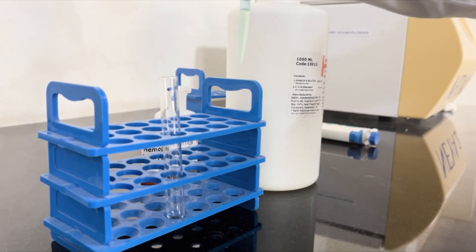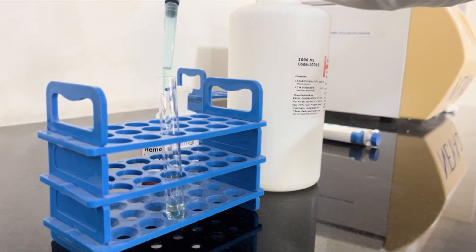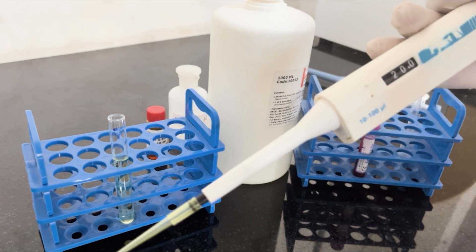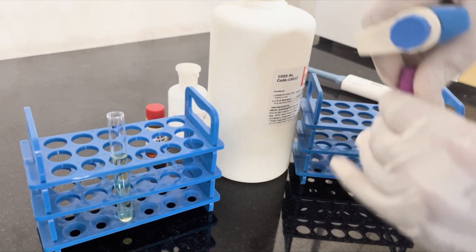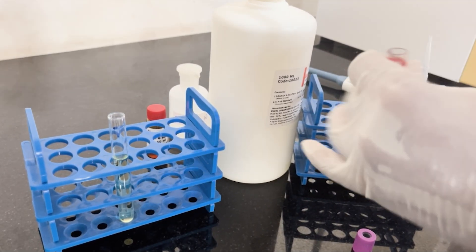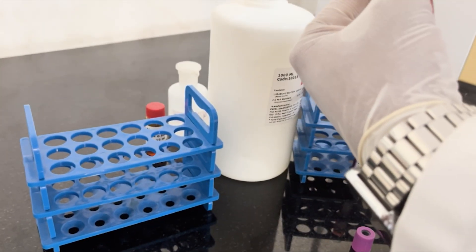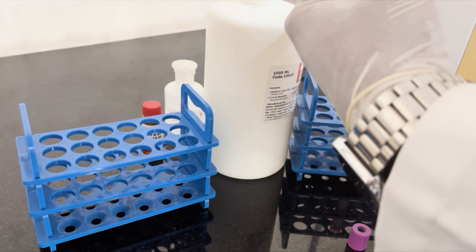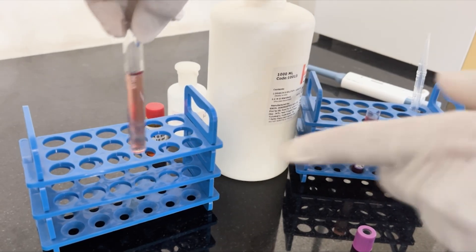Coming to the procedure: we need to add 5 ml of Drabkin's reagent in a test tube using micropipettes. After that, we need to add 20 microliters of blood sample to the 5 ml of Drabkin's reagent in the test tube, mix well, and wait for 5 minutes.